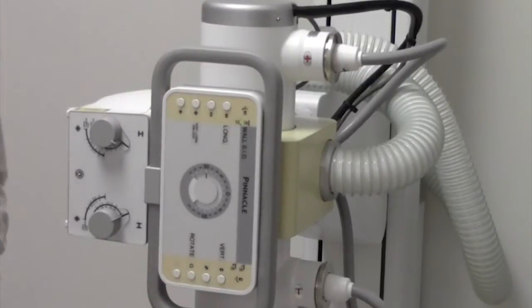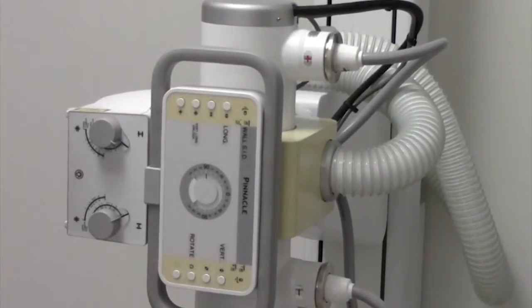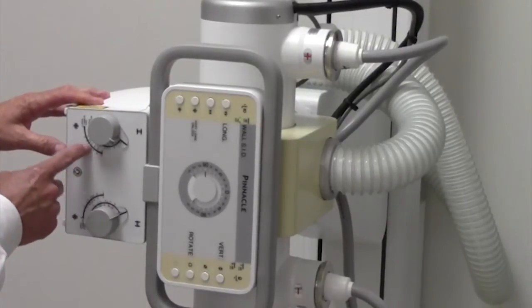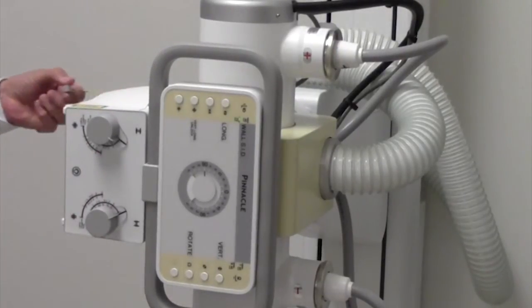It even has transverse movement for analog installations. Manual collimator with the 40 and 72 inch indicators and a tape measure.